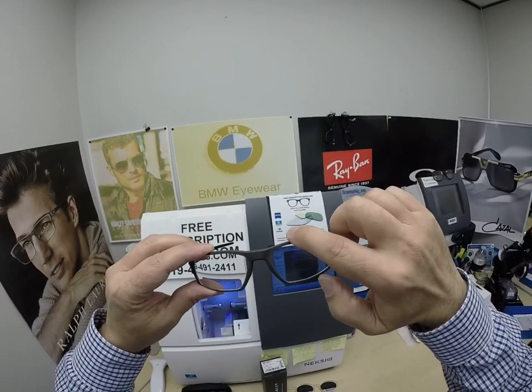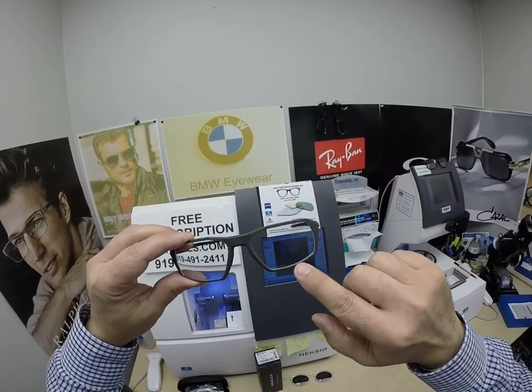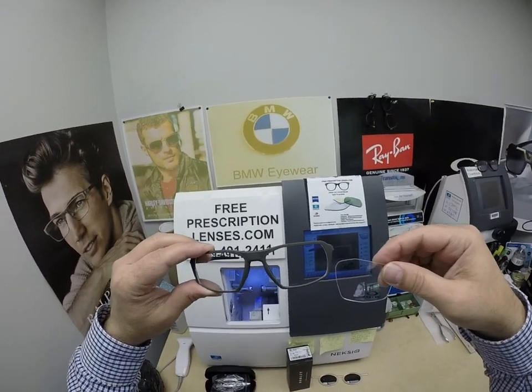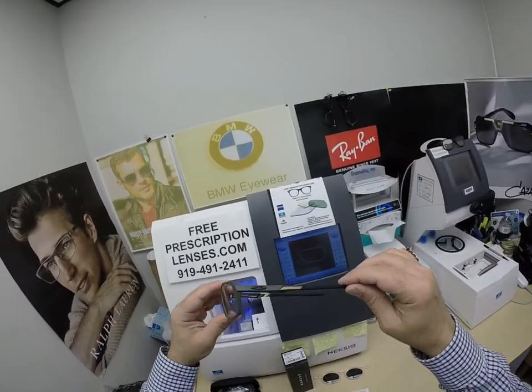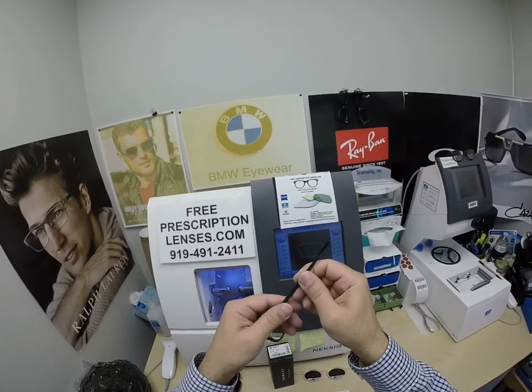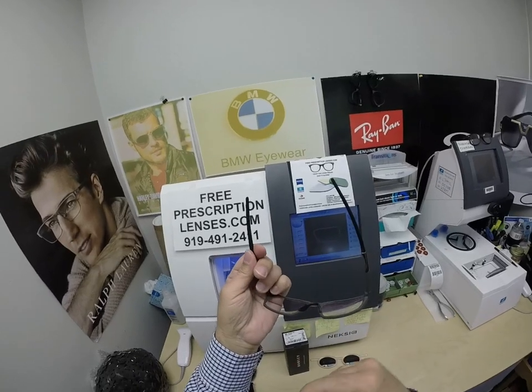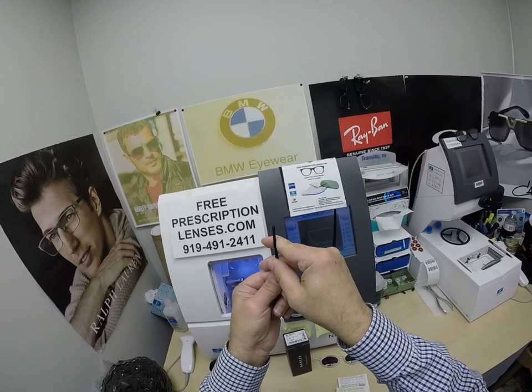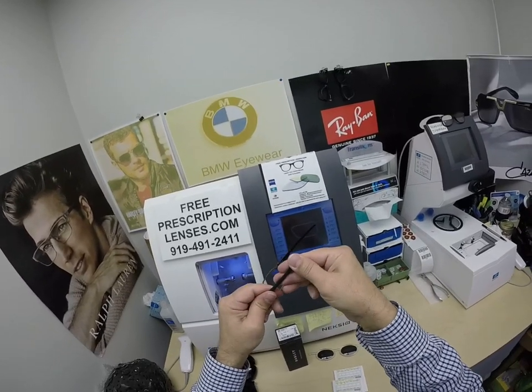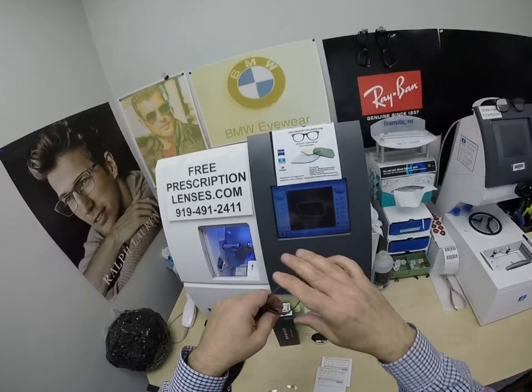Very unique styling. It has a very angular top and even in the bottom middle that follows the contour of the lens — that's kind of unique for Oakley. It's got the straight temples that go back with the built-in wrap. You can actually adjust this yourself: if you want it to fit tighter, you can bend these in; if you want it looser, you can bend them outward.